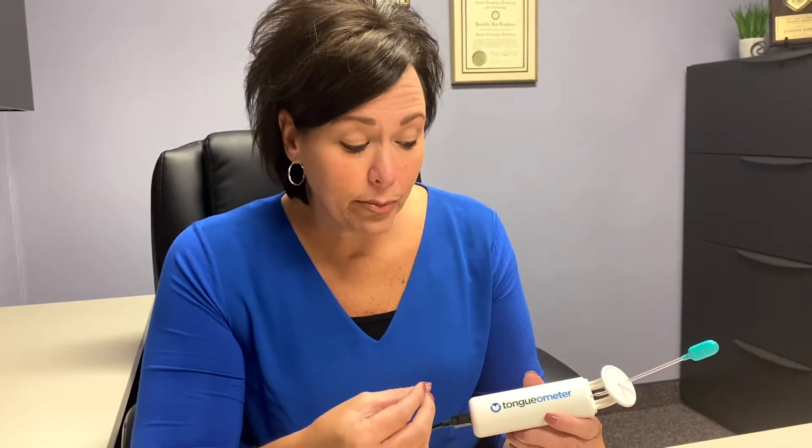In 2019, I was recovering from surgery and radiation after tongue cancer and had the opportunity to use a similar device. With a portion of my tongue being removed and reconstructed, I have weakness and I don't have sensation on one side of my tongue. I was able to use this device to get visual feedback so that I could see if I was applying enough pressure and using enough strength, and knew I was making progress.